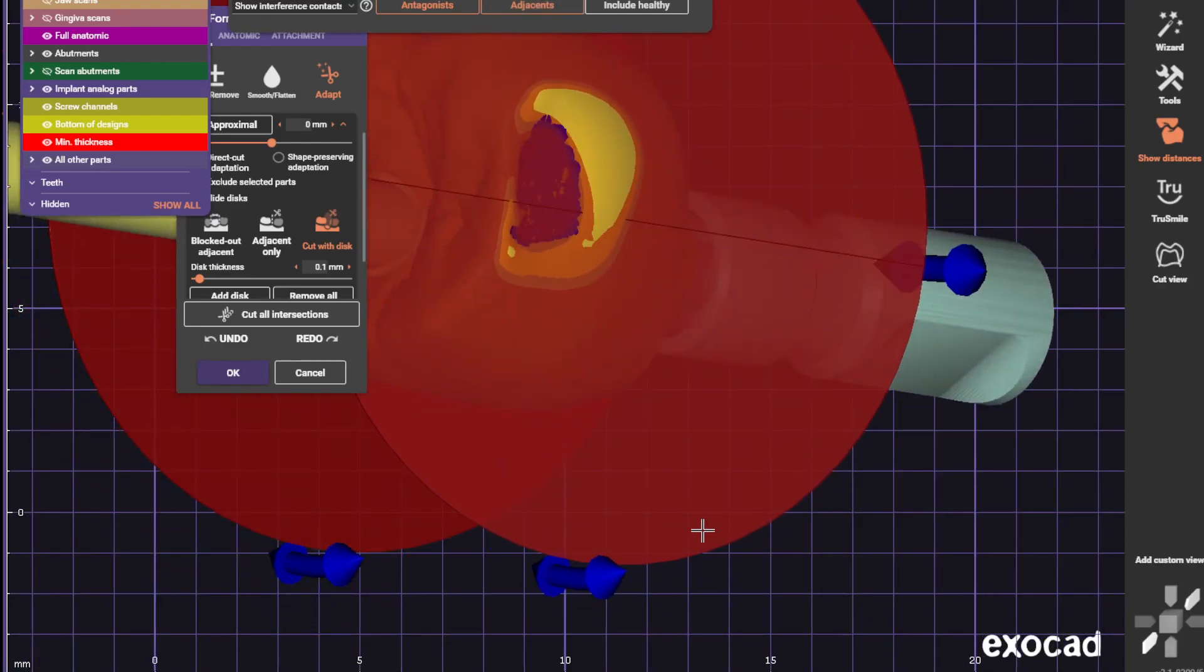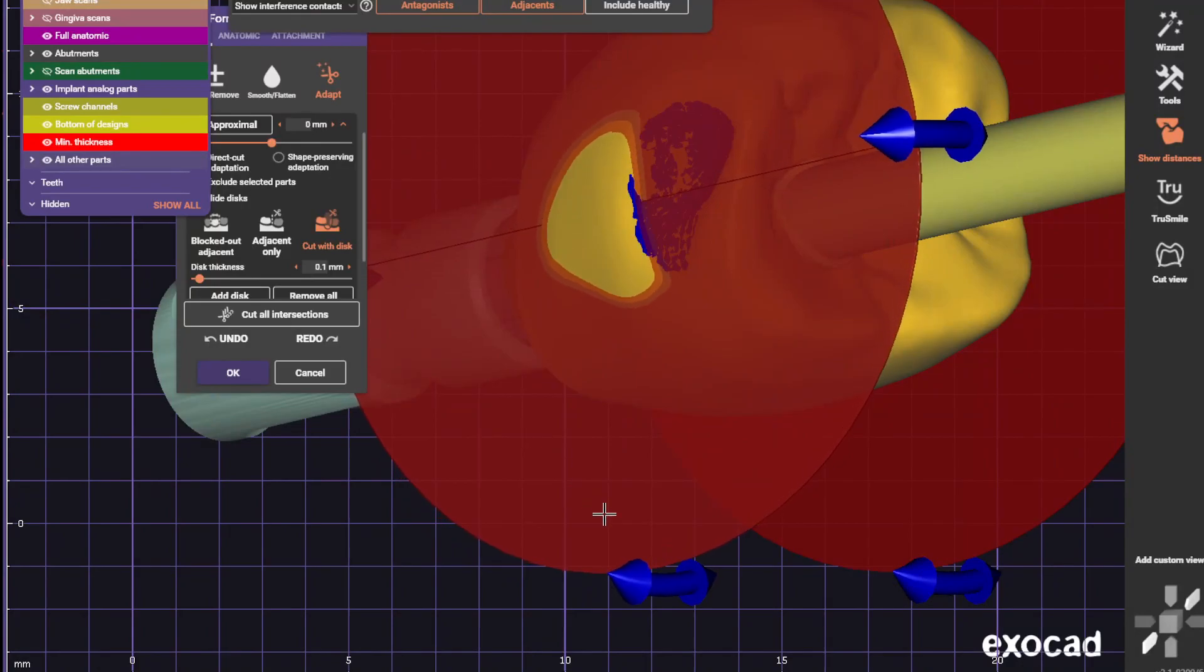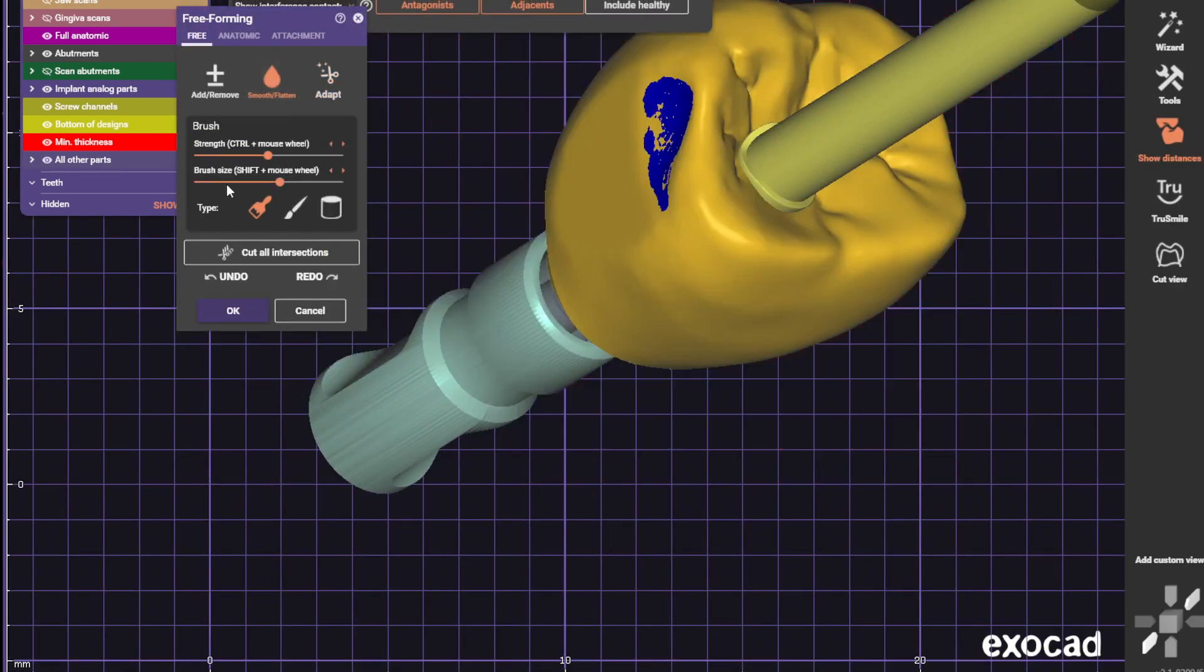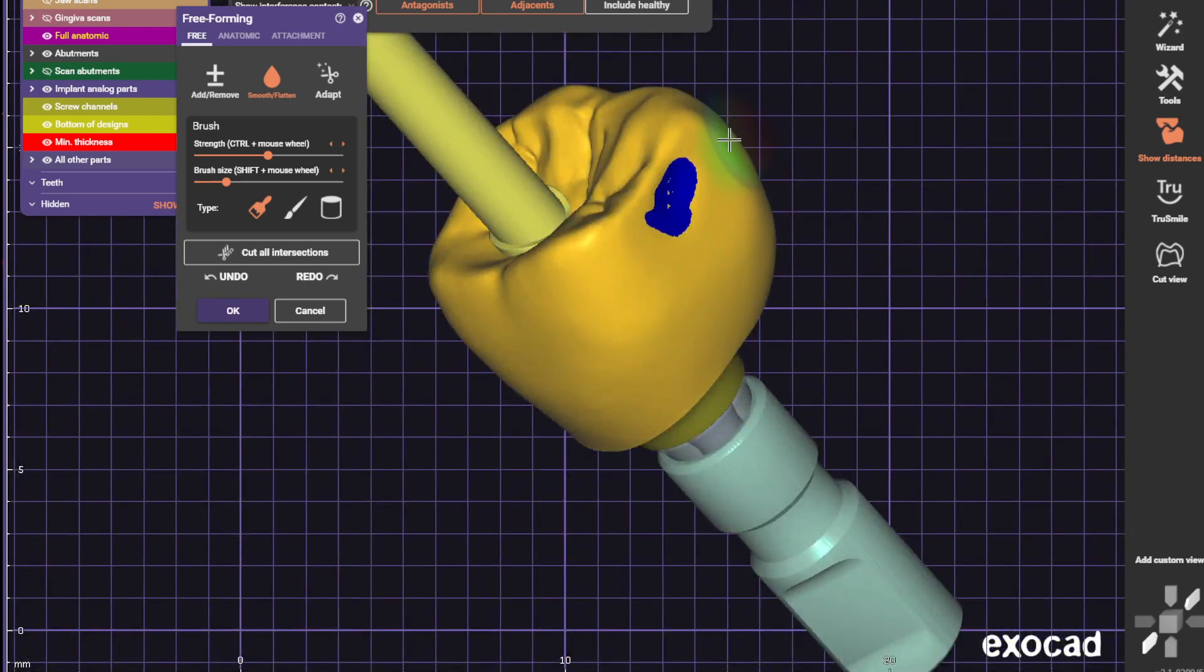Check these contacts. Okay, over here. Okay, now we just cut. And we'll smooth out this little area that we just cut. Smooth out this area right here.